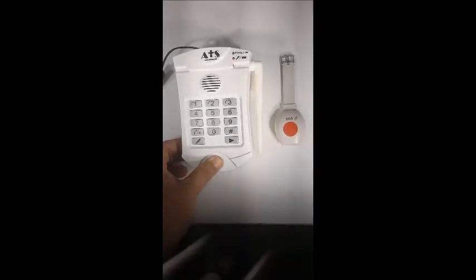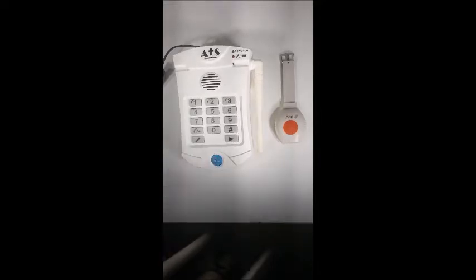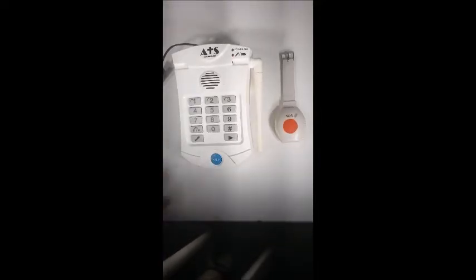The beep means that it's paired. Now let go of both buttons. To confirm that it's paired, turn the power off.